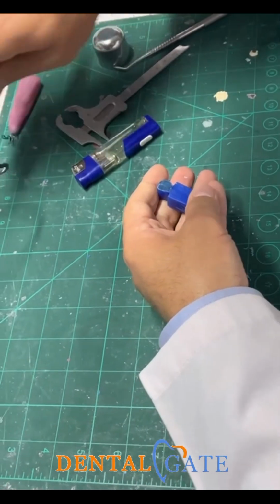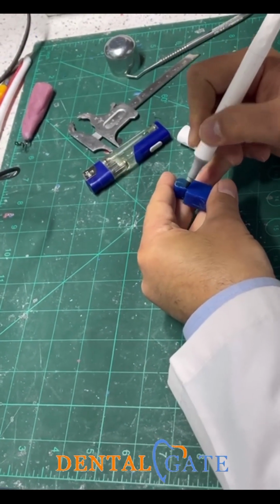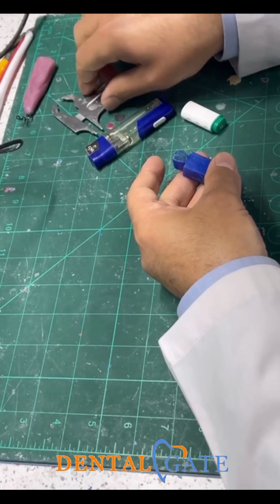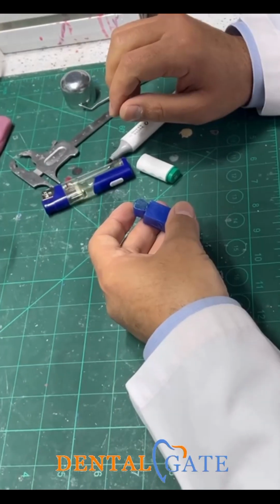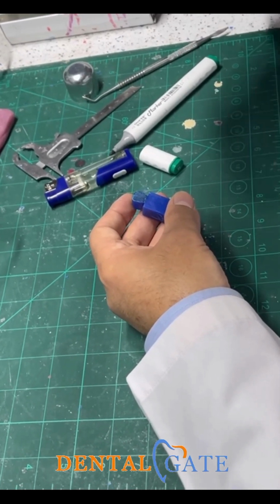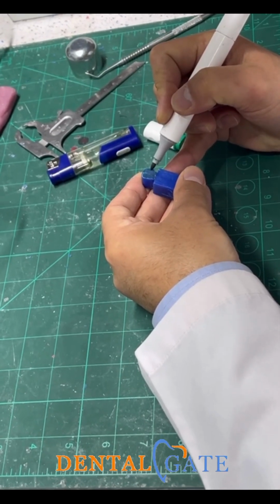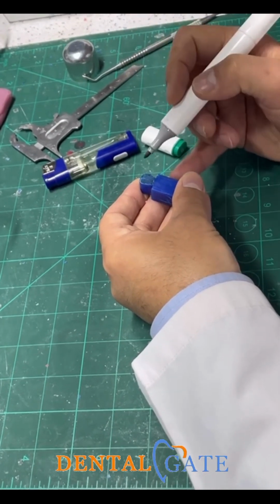So we have two dots here at the cervical line. It represents the minimum width of the crown at the cervical. As well, we have 6 millimeters, but not correspondingly lined up at the same level. We have one at the junction toward the cervical. This represents the contact area. So we need only 3 millimeters here.